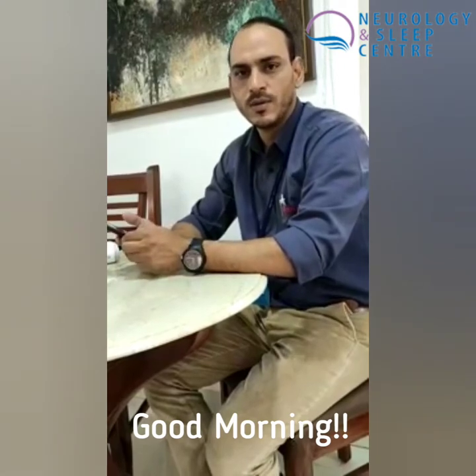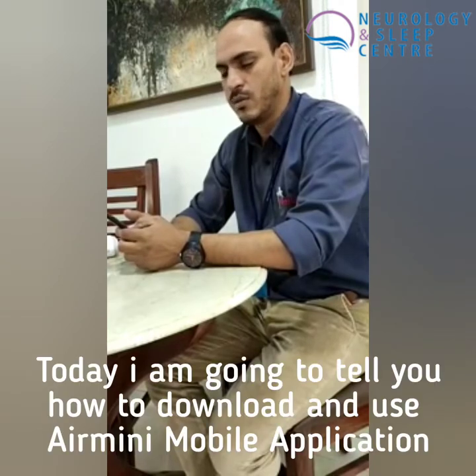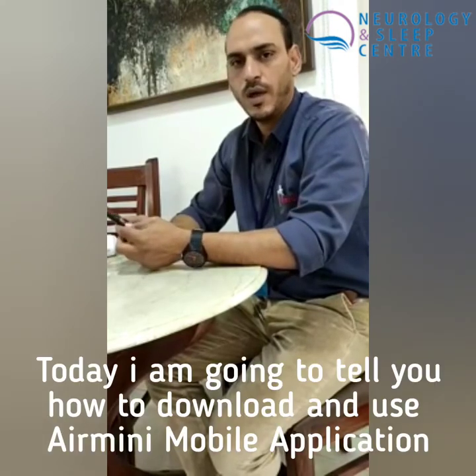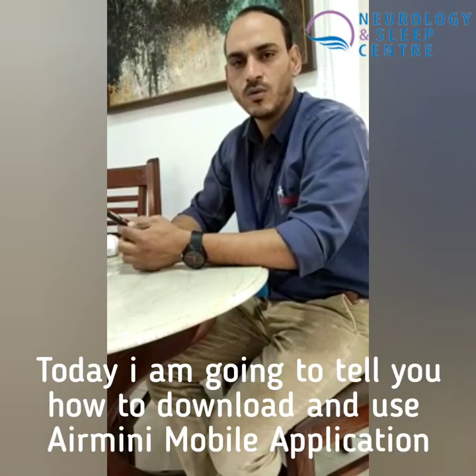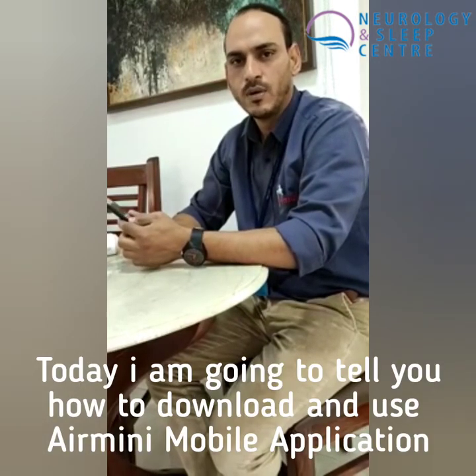Good morning, myself Ali Singh and I'm a sleep manager in Neurology and Sleep Center. I'm going to tell you about the AirMini device and how to use the app.